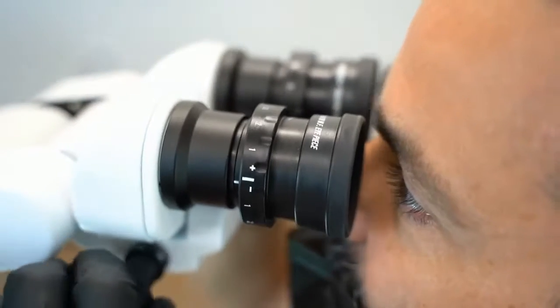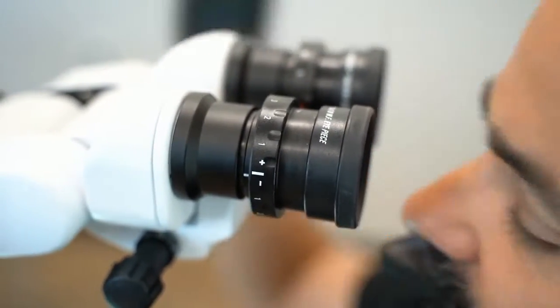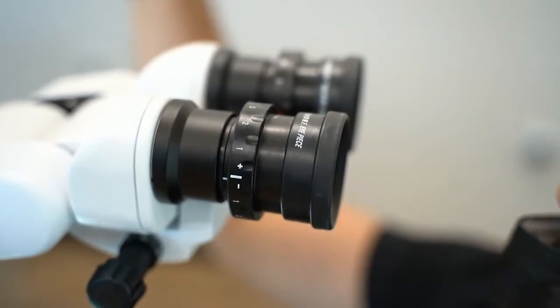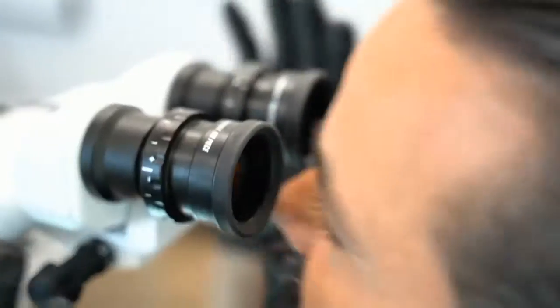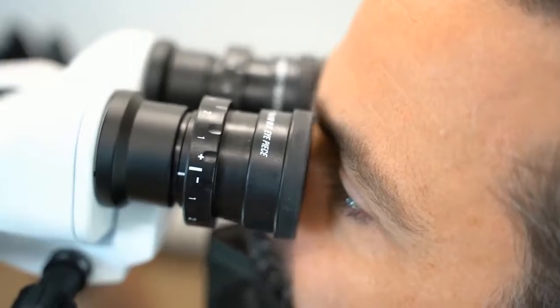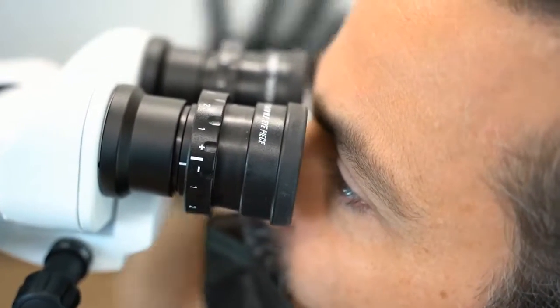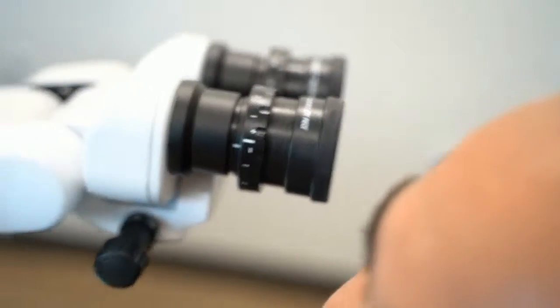And get this set. What I always do is start wide. As you look through these, everybody's probably looked through binoculars before, you're just making the two circles come together, and that gives you your broadest field of view. Now, if you rest your nose and your eyelids up into these cups, what's nice is the external environment just sort of dissipates, and you can get really focused and really into a funnel.